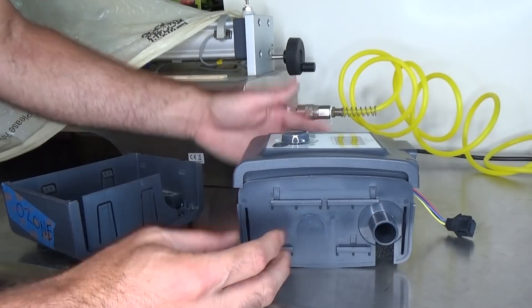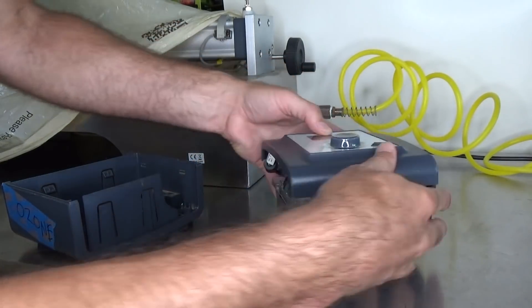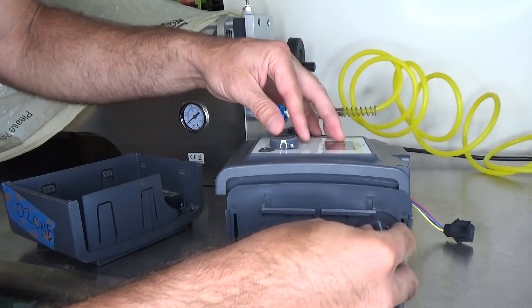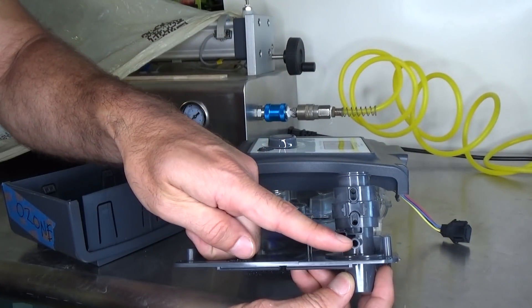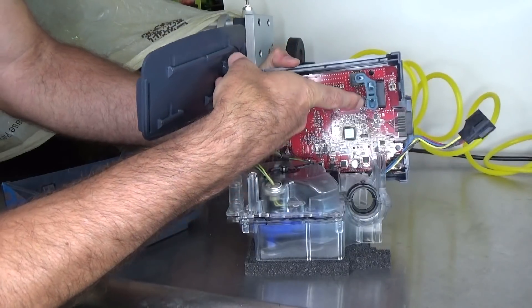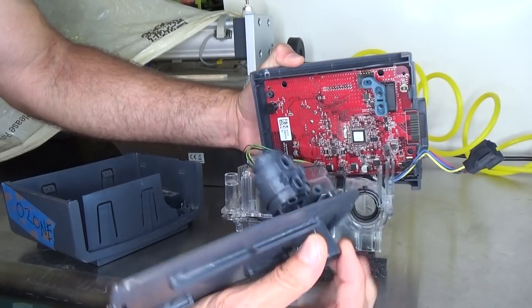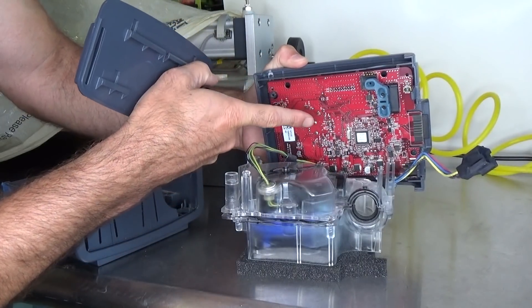I already have my video edited, but I want to add this because it's so dang cool. I have the unit basically bare bones so you can see what it looks like as it sits in there — I get a lot of questions about that. If we peel off this side, this is what goes into the humidifier — this tube. On this tube is this little hole right here. This little hole connects right here and seals in there. This is what gets the pressure reading if you're using something like Oscar. This is where basically the algorithm comes from — it's reading every waveform and processing those waveforms to determine what the auto CPAP should do: adjust up, down, whatever.